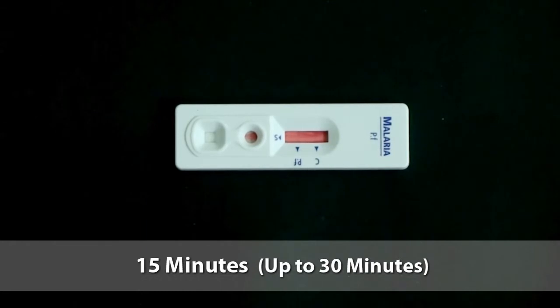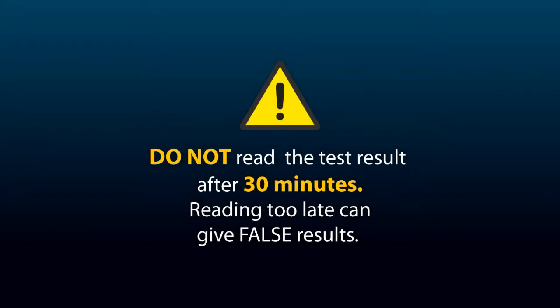Wait a minimum of 15 minutes, up to 30 minutes. Do not read the test result after 30 minutes. Reading too late can give false results.